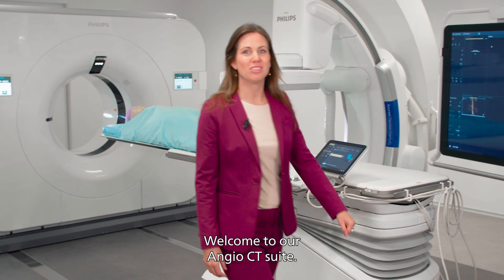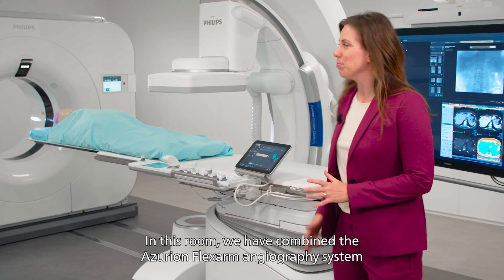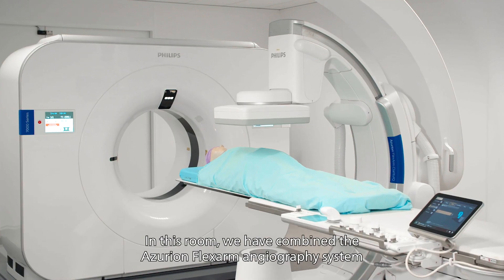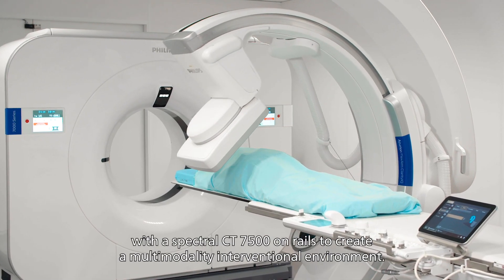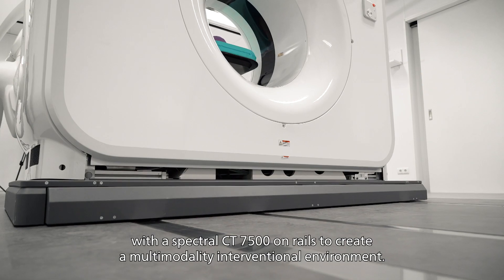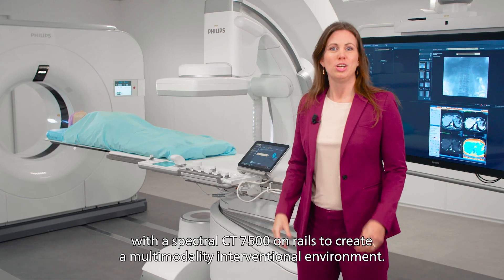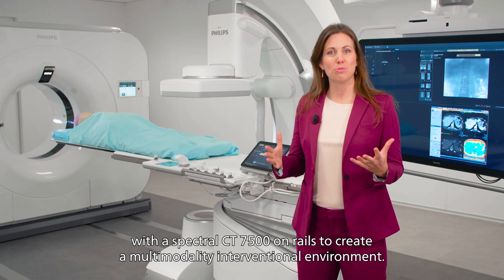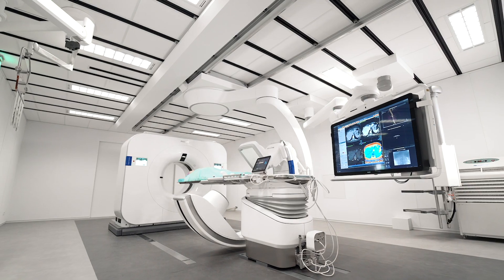Welcome to our AngioCT suite! In this room we have combined the Azurion FlexArm angiography system with the Spectral CT 7500 on rails to create a multi-modality interventional environment.